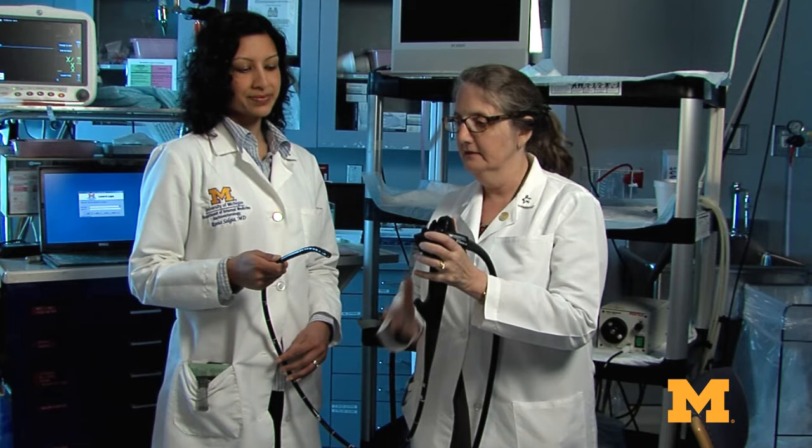This is an example of an endoscope. All endoscopes in medicine, whether we're using them to look in the lungs, the bladder, the stomach, or the large intestine, are basically built on this same platform.